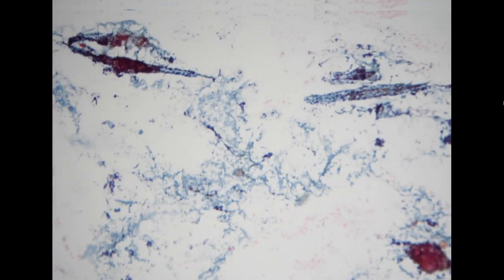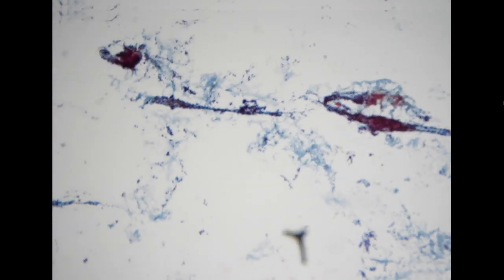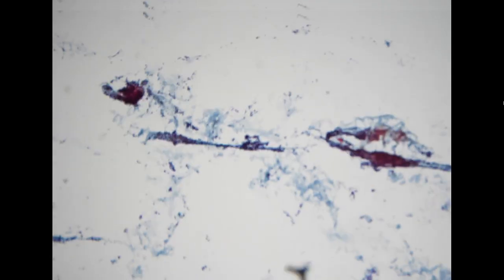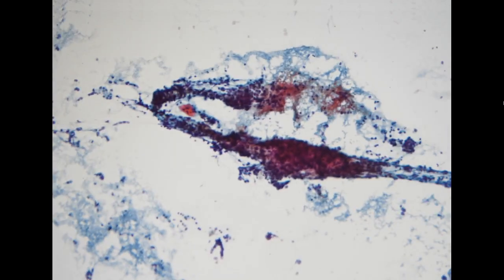So this is a bronchial brushing specimen, which is relatively uncommon here in our hospital because our chest medicine department has their own cytology service. So they rarely do the brushing, but they still do the lavage. But they examine their own specimens, so usually we won't get this type of specimen.